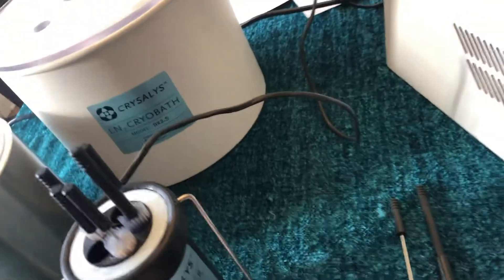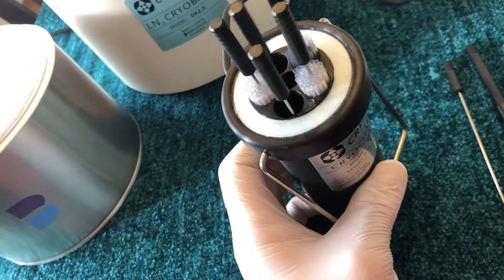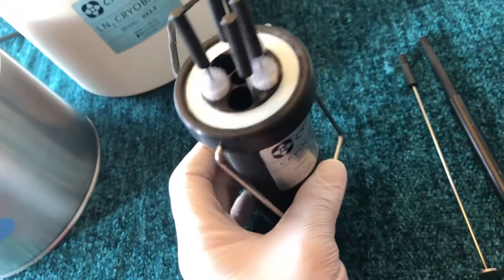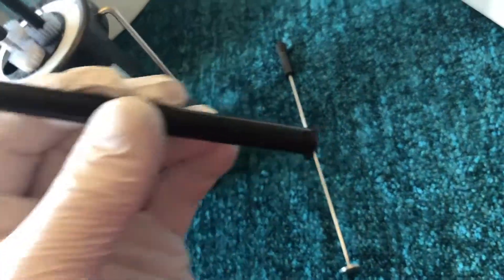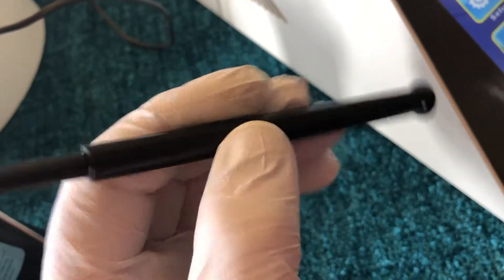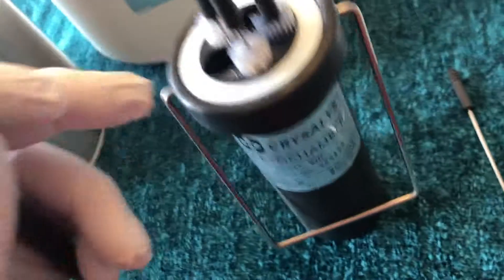We use different types of lifters in this five-slot chamber. There are actually five holes here — kind of like a revolver in a gun, but instead of six we have five radial wells, and then one central well in the center of the core. These are the two types of lifters employed. This one allows the straws to cluster around the annular area of the tube, so you get thermal conduction from the bottom of the aluminum out through the straw and also from the walls of the chamber.